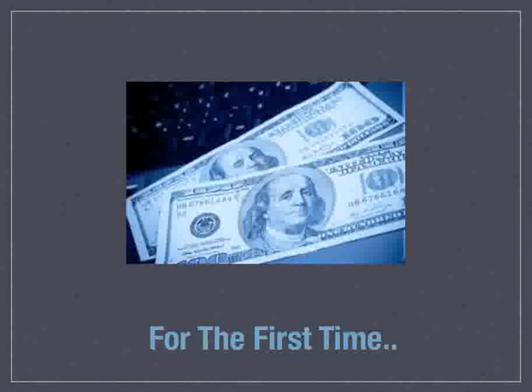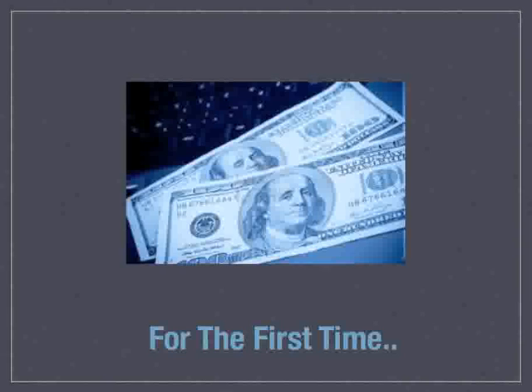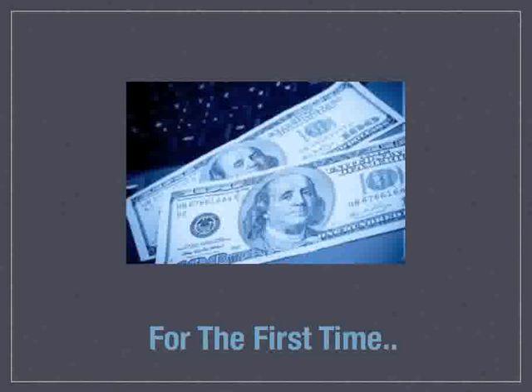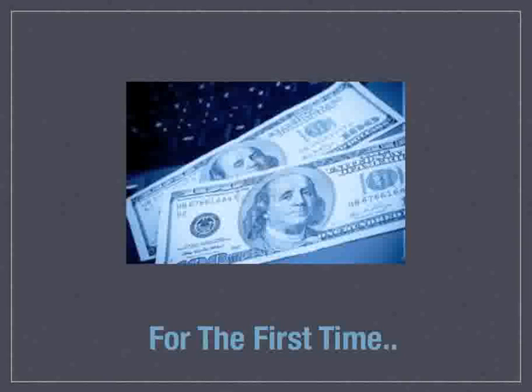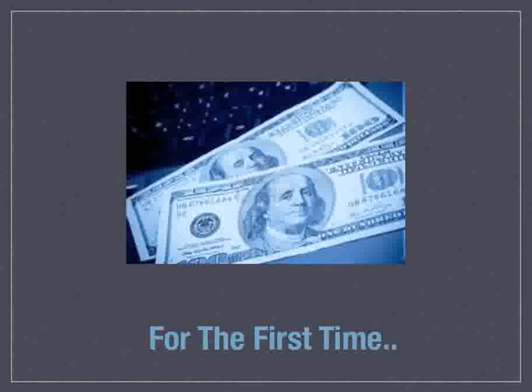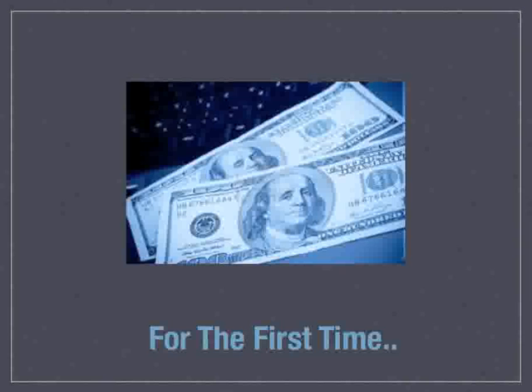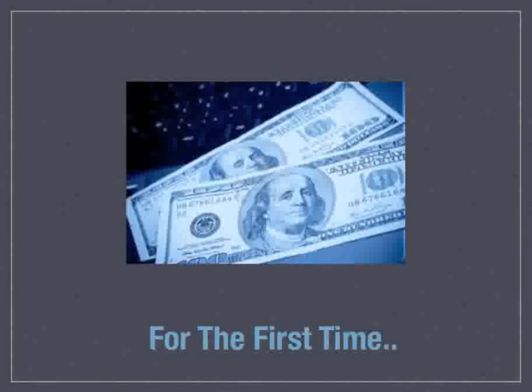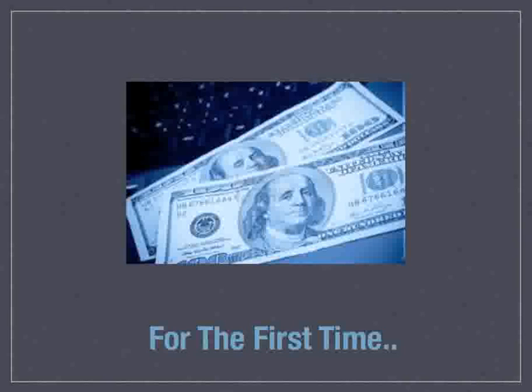With Emax as a chair-side solution for the very first time, this becomes an incredible opportunity to not only deliver high-quality care, but to save some money. On average, to build an Emax abutment and Emax crown from start to finish in our hands costs about $165. The lab fee to produce something of equivalent quality on a nationwide scale generally ranges between $350 and about $600. So at $165, we're in real good shape, and we have total quality control.